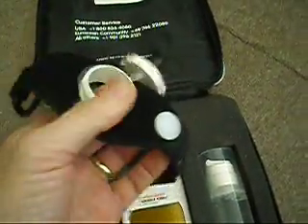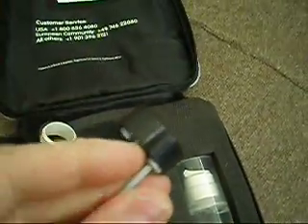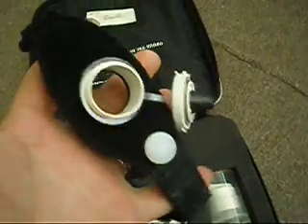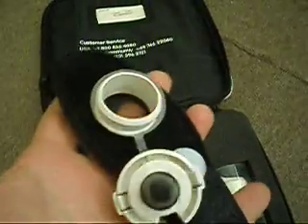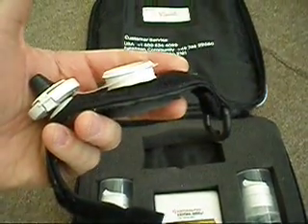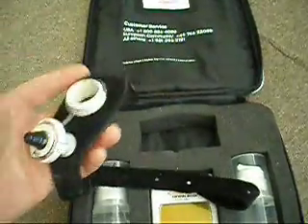Here's the device itself. If you know anything about the Bone Stimulator, this is the device used to house the element that sends the signal to the area. This is one of many straps and appliances available in the system, but this offering only includes this one. This will handle anything except the body — so you're talking about an extremity breakage: not the shoulder, but hand, arm, leg, upper arm, lower arm, foot.